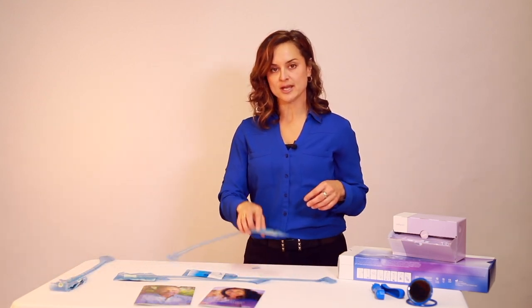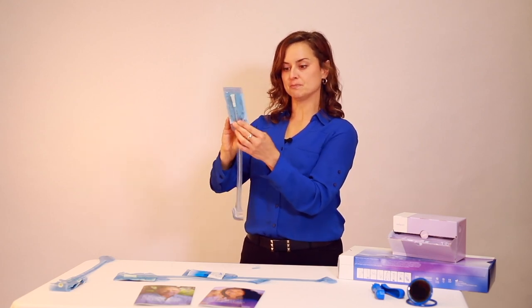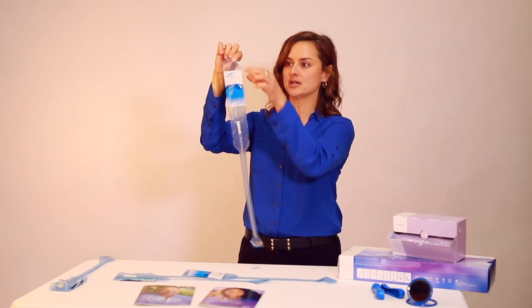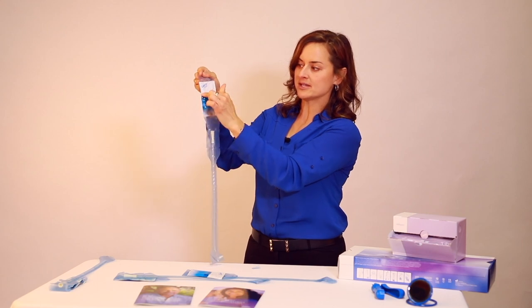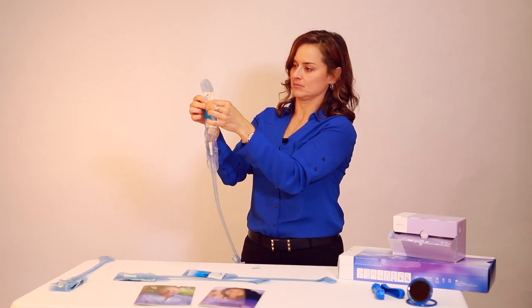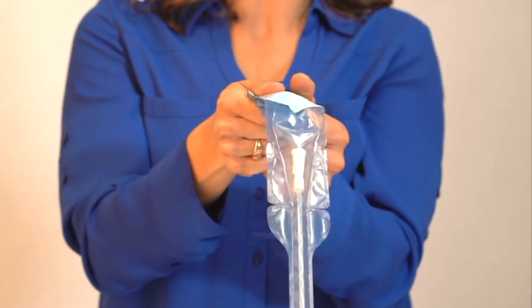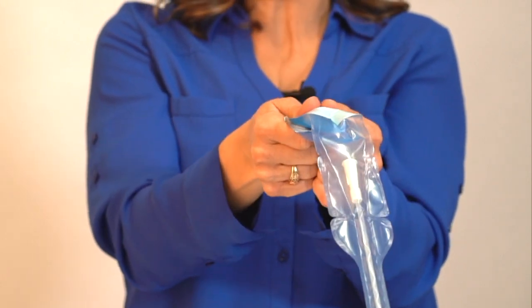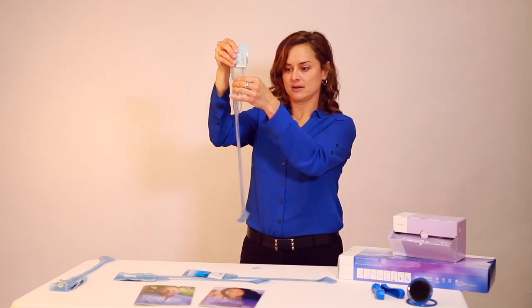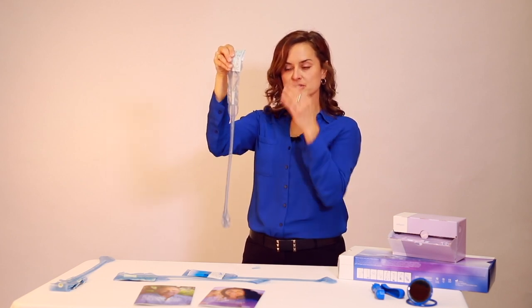The other method I'll demonstrate is the touchless method. The first step is to pull the sterile water sachet away from the catheter package. Make sure that the water is below the blue water line. Trap the water into the bottom half of the packet and then push down with your thumbs to release the sachet. Allow the Lofric Primo to soak for 30 seconds.